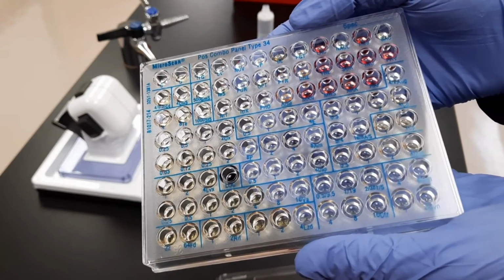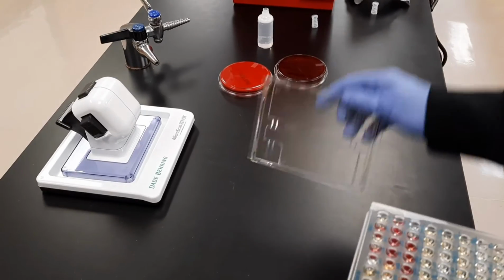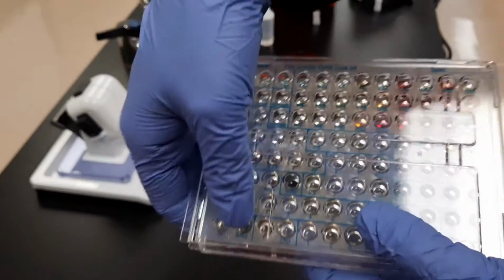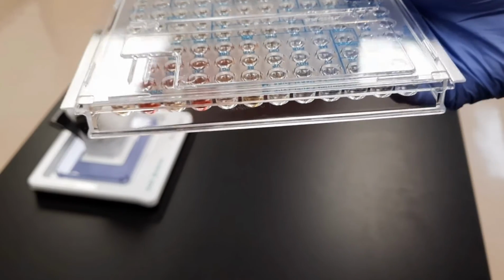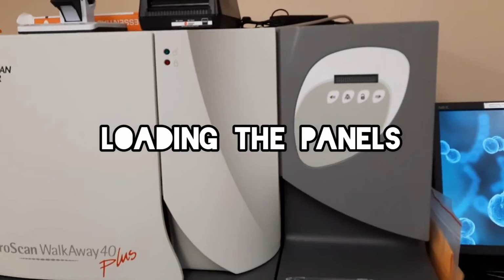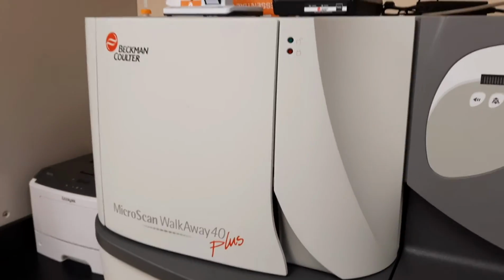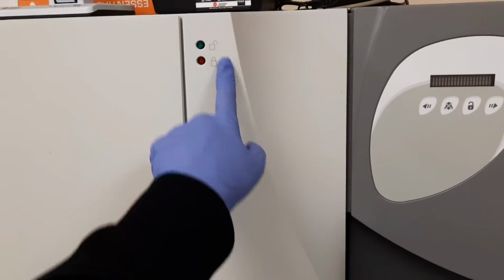There are different types of panels, some for identification only, and some as a combo of identification and susceptibility patterns. As you can see, there are some reactions already taking place. A label will be placed here and it will be loaded onto the MicroScan WalkAway in that fashion. To load it, first you need to ask for access by hitting the unlock button. You should be able to hear it, and it will go from red to green.